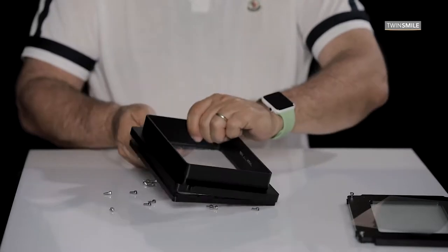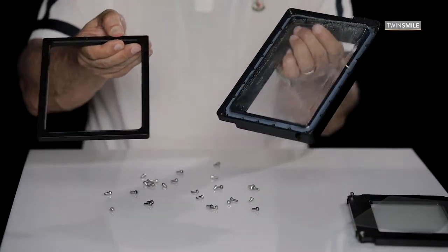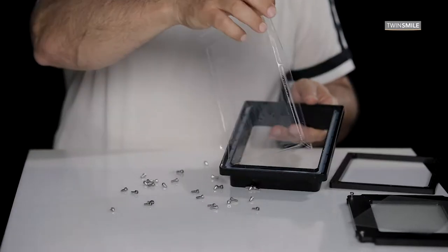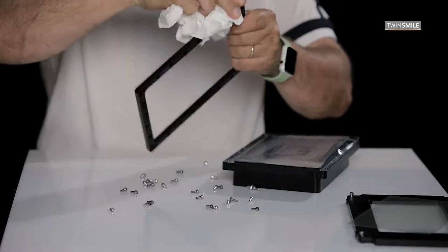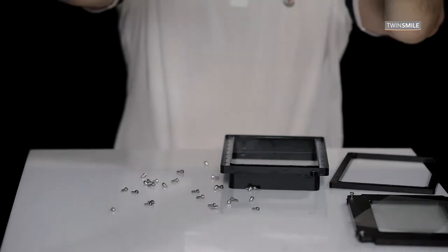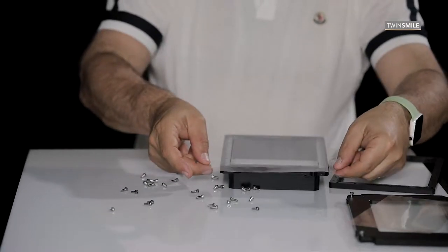After removing all the screws, you can remove the frame that is holding the VAT foil in position. Remove the foil, clean all parts with isopropanol alcohol, then get the new Teflon foil that is supplied with the printer and place it over the VAT tank.